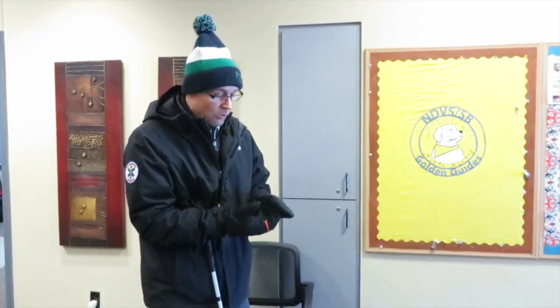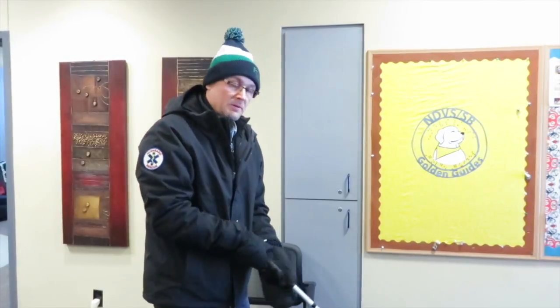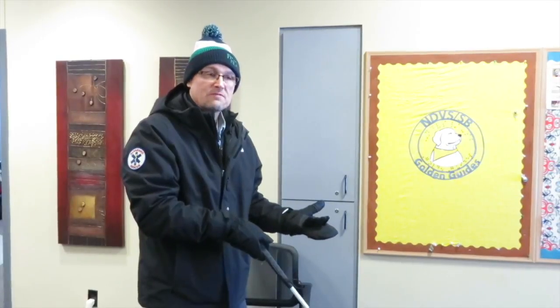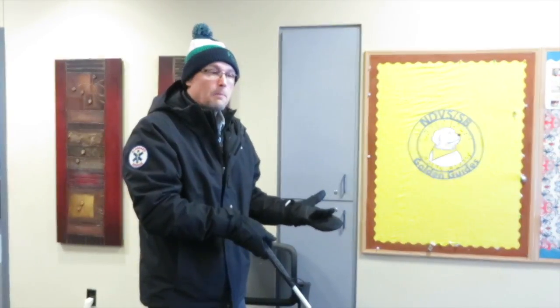However, if it's very cold out, I can use the mitten. The grip is going to be different, and you might not like that if you like extending the finger along the grip. But when you're in snowy conditions, you have to first and foremost be safe. All right, let's go.